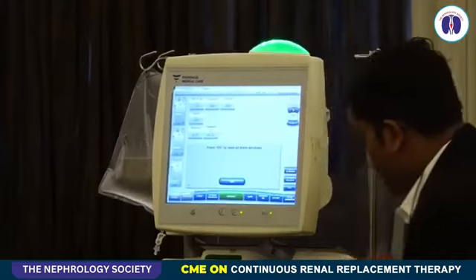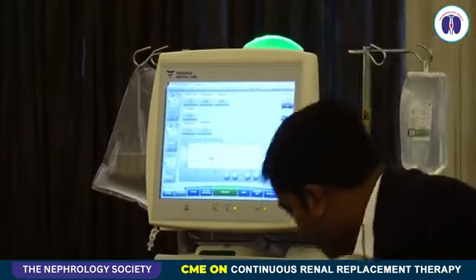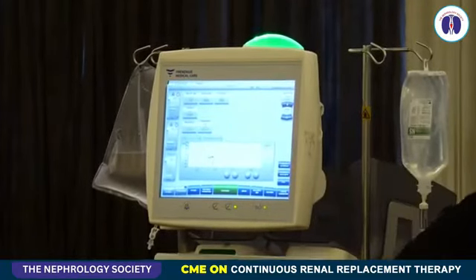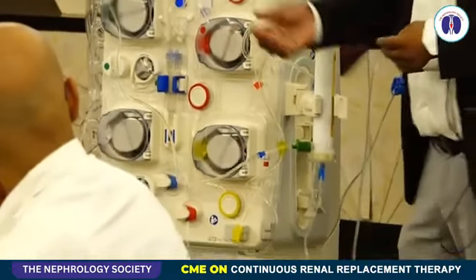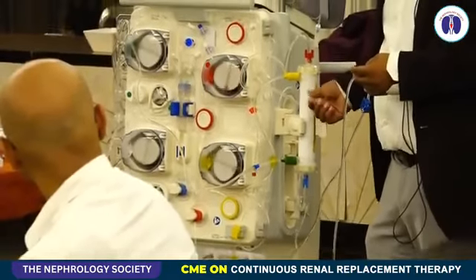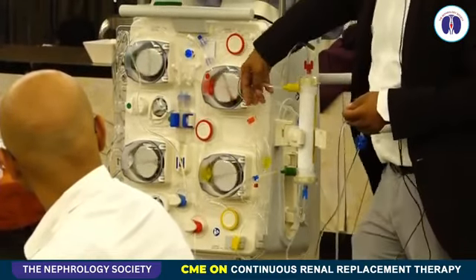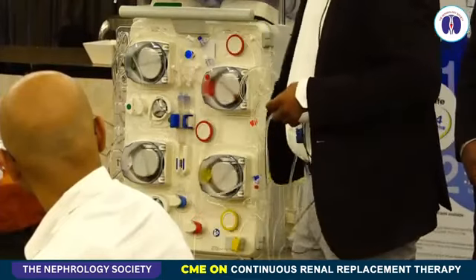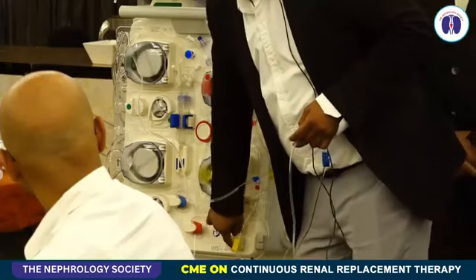Along with that, a blood leak I cannot show you because we do not have blood. This is a blood leak sensor on the effluent line. If, by accident, on day 2 or day 3, our membrane gets ruptured, there will be RBC staining. RBCs will come and it will be detected by this, and you will get a BLD alarm, blood leak detector alarm. So this is called the blood leak detector.